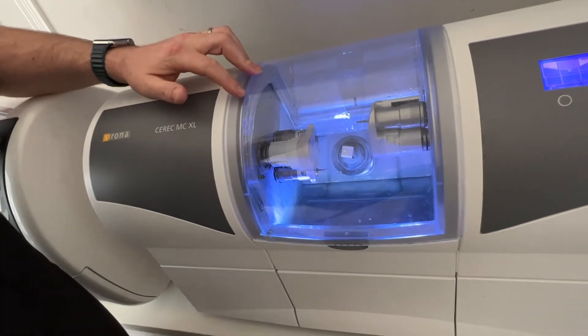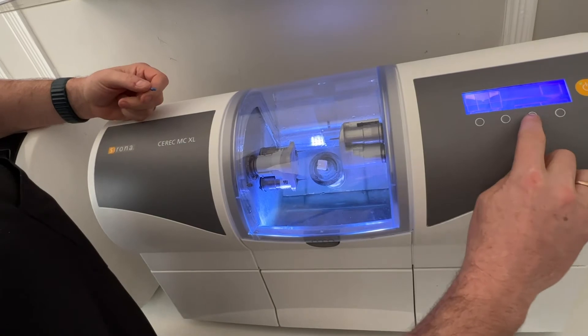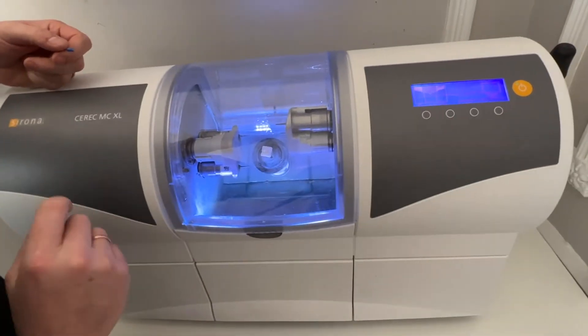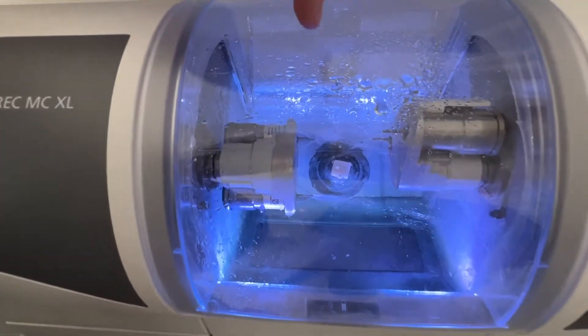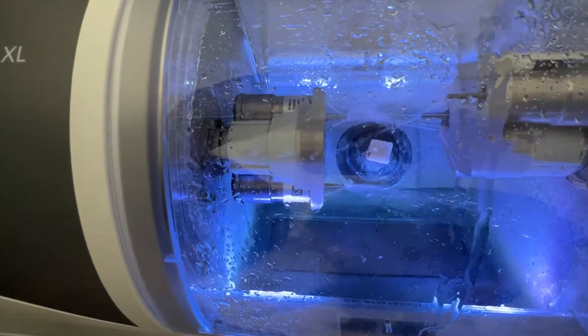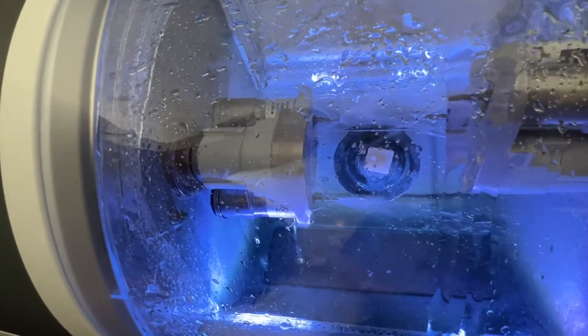Now if I close this, I'm going to show you with the pump on. I'm going to press this pump button and you can see now that left one, the water is jetting completely towards the end of the tip.